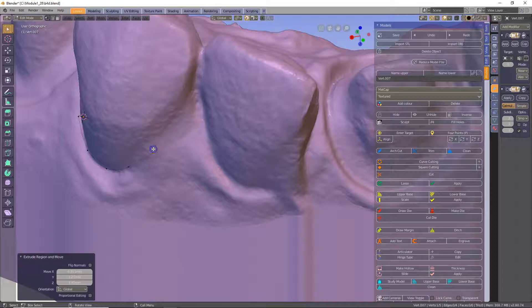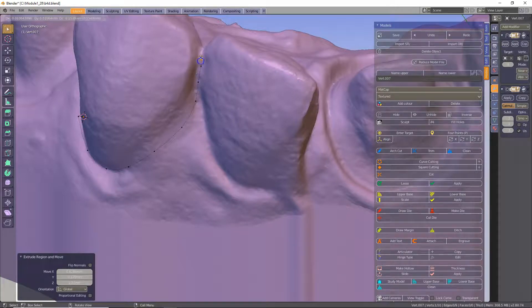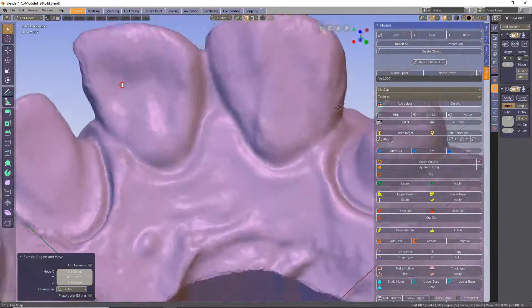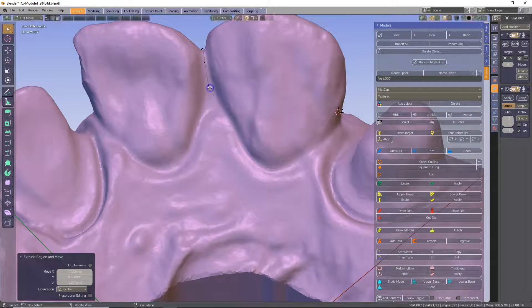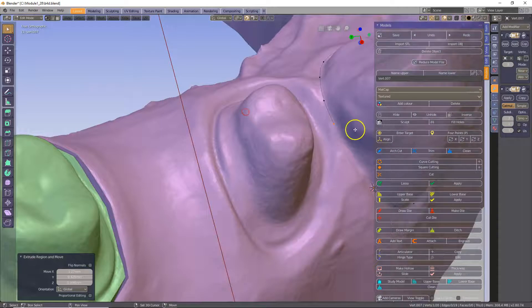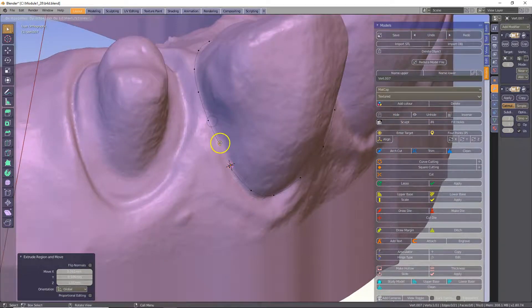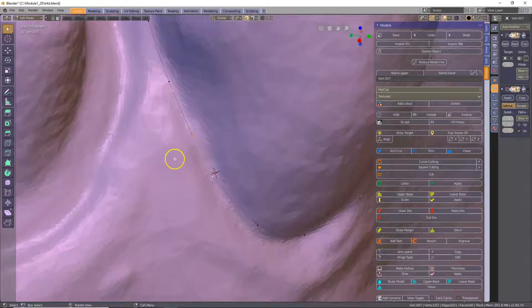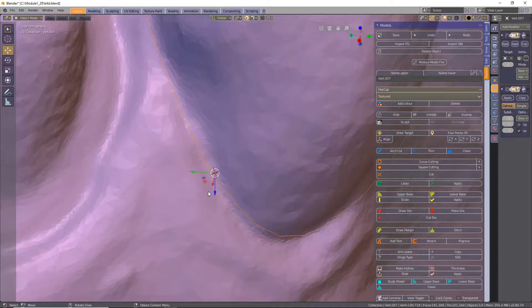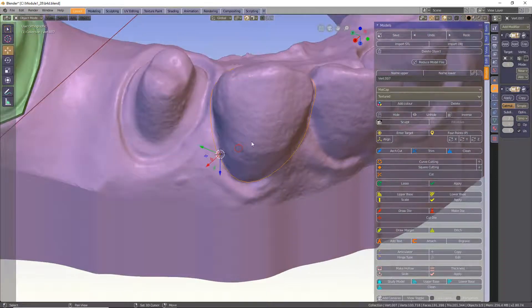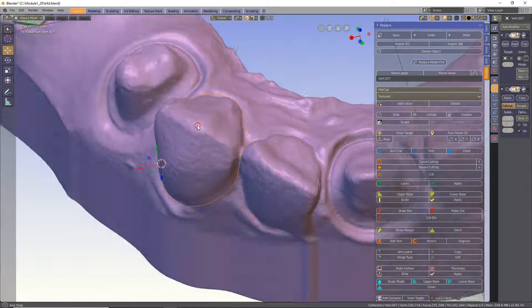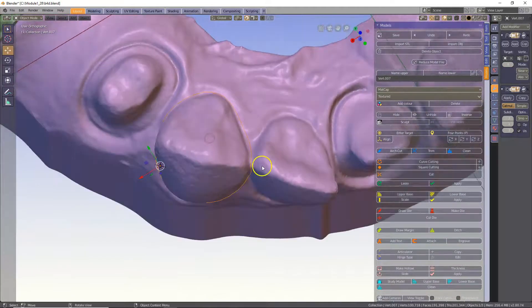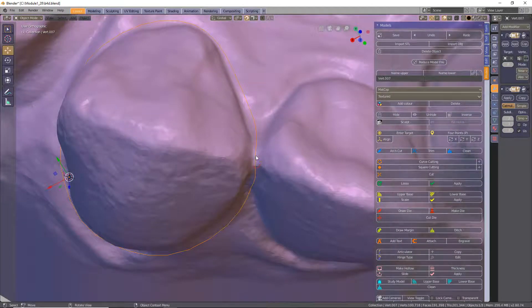Press E to extrude and left click to place. The contact here is undercut. This is why we need to close the contacts once we have outlined the tooth. When you get to the other side, shift left click to add it to the selection and then press F, then tab to get out of edit mode, making sure that the line does not touch anywhere. If it does, it will most probably be over the contact where it's most convex.